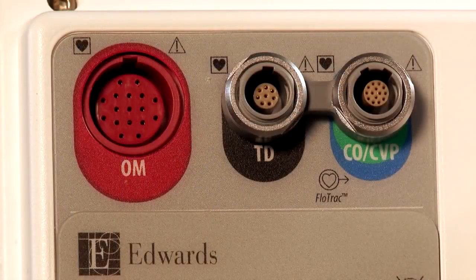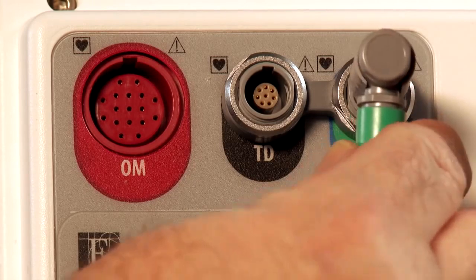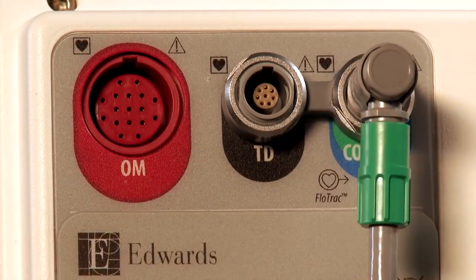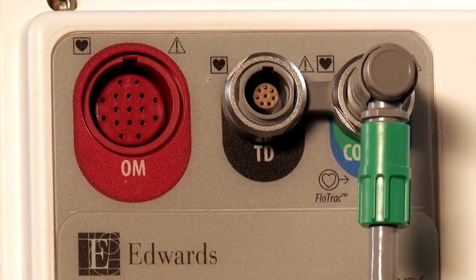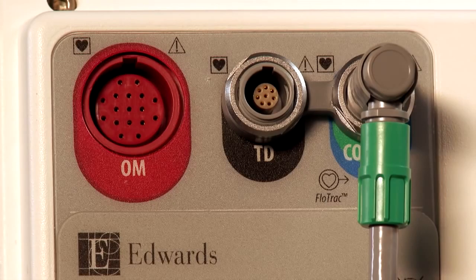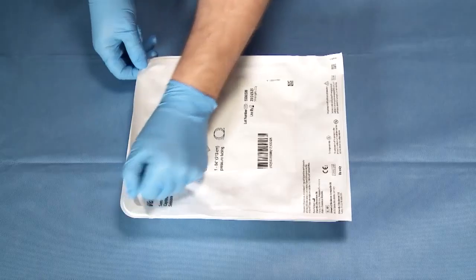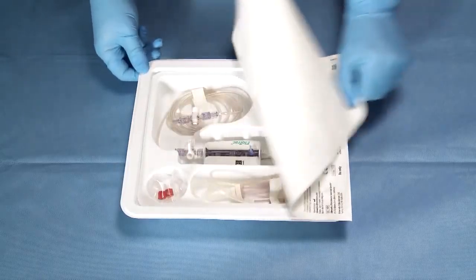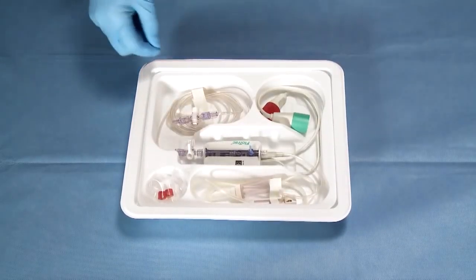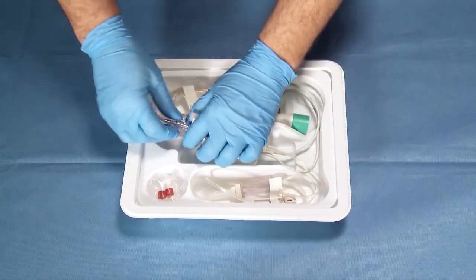Insert the trifurcated pressure cable into the green and blue color-coded CO-CVP pressure connection on the back of the data box. Open the FlowTrack kit using aseptic techniques and check that all connections are secure.